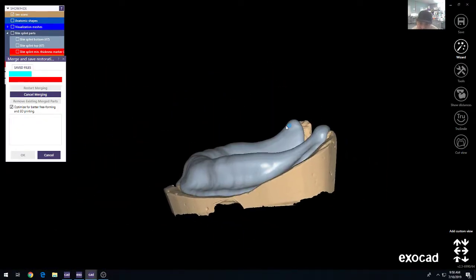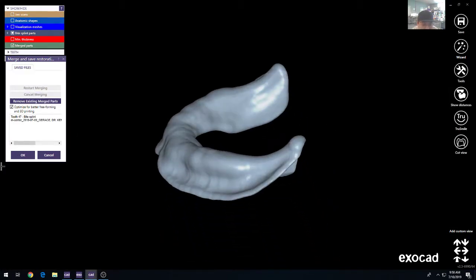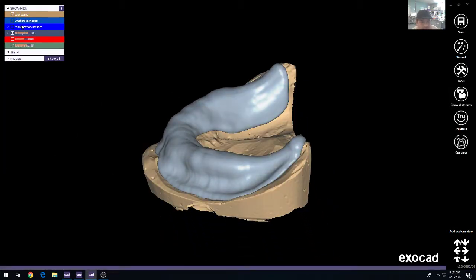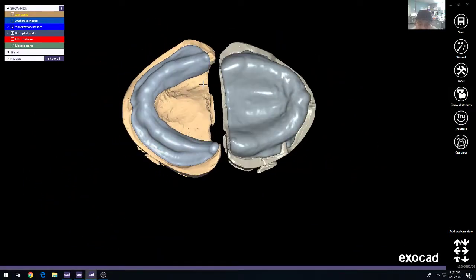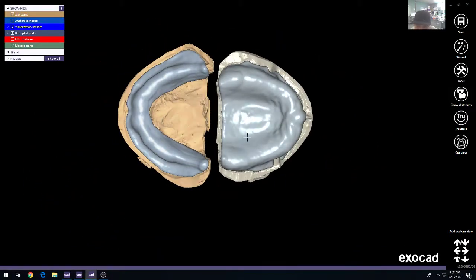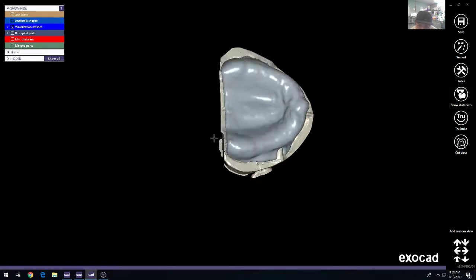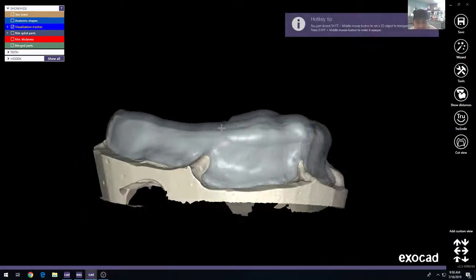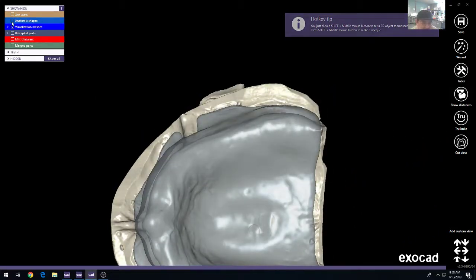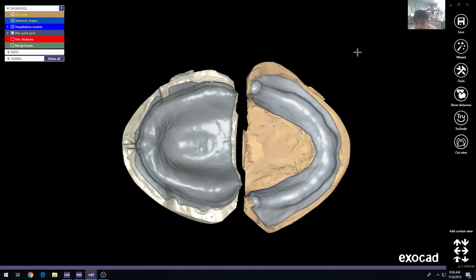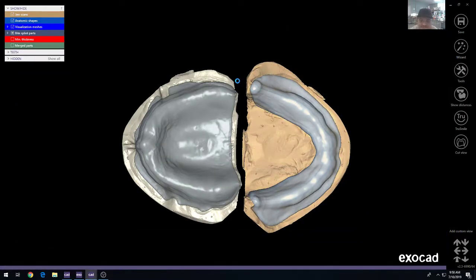It's kind of the same process as creating a Bitesplint, just honestly less to it. So very approachable. You can see here that I brought in the other Bitesplint as a visualization. So you can do that if you wanted to save them both in the same project. That'll be a nice way to keep the cases together.